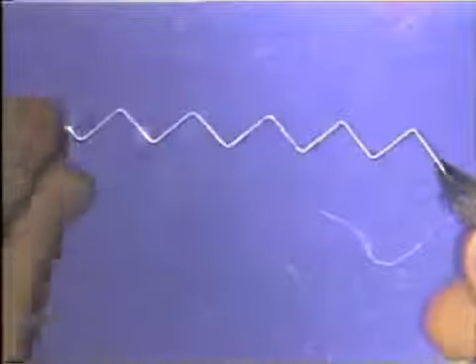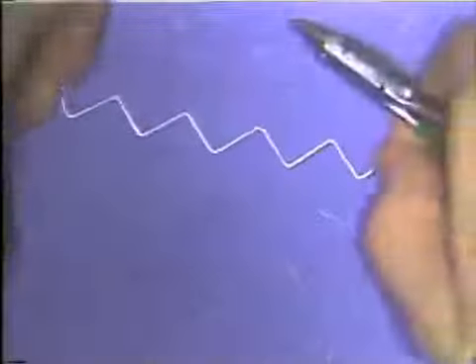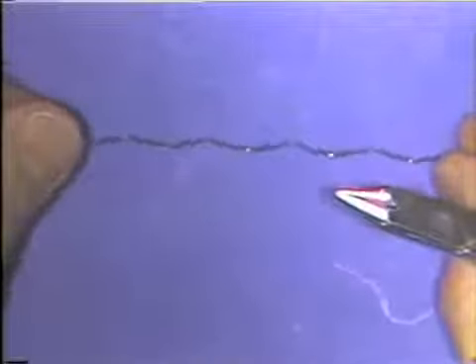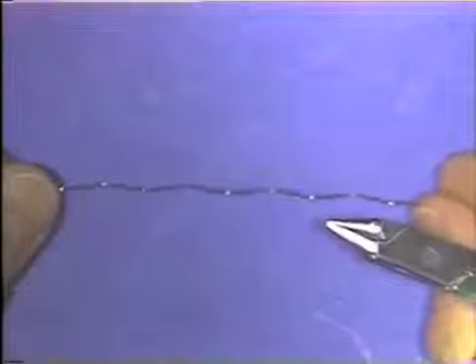Orthodontic wires must be accurately formed in all planes of space. There are techniques that can be used to control and correct the plane in space of a wire. Wires are often compared to a flat surface, like a tabletop or a glass slab, to determine if the wire is bent in the same flat plane of space as this one is.